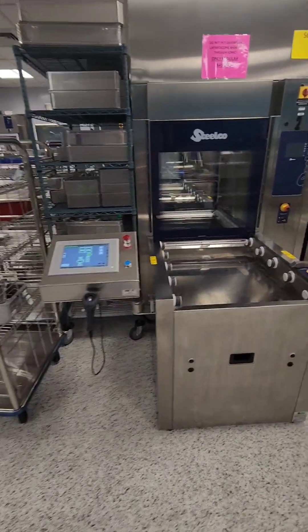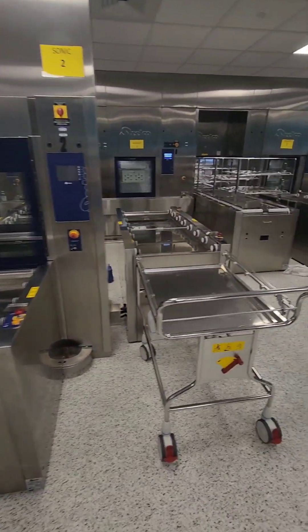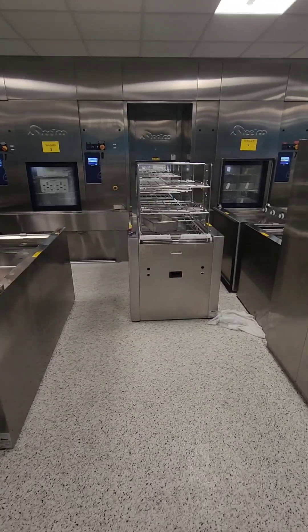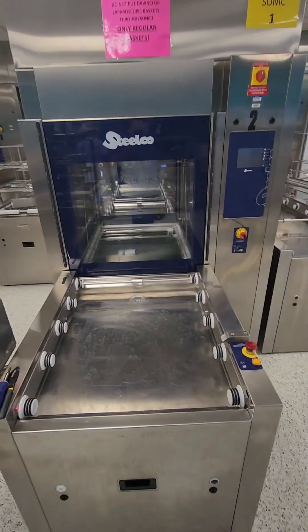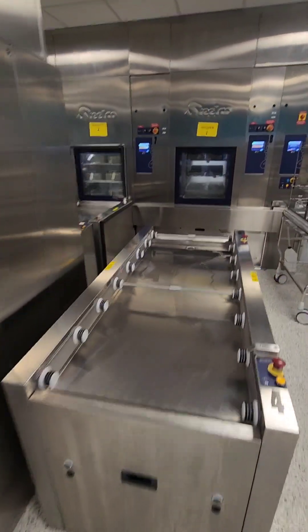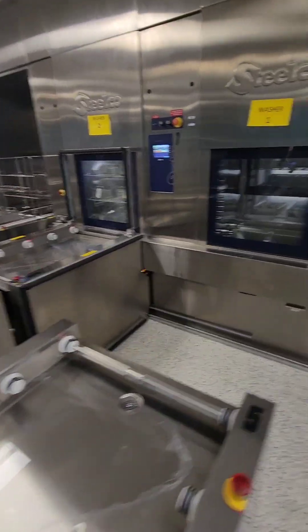I can see the beautiful Da Vinci arms over there. This is what it looks like when they come down from the OR. Here's a little showcase of our ultrasonic washer and our washers. That unit in front is an ultrasonic washer — and there again on the other side, that's also an ultrasonic that takes the same baskets that go into the washer.